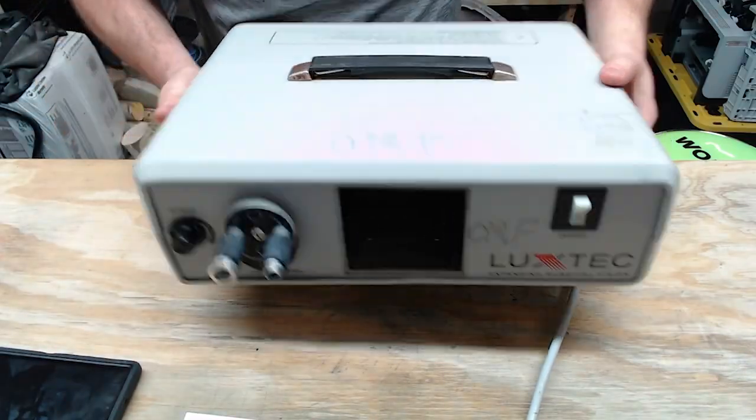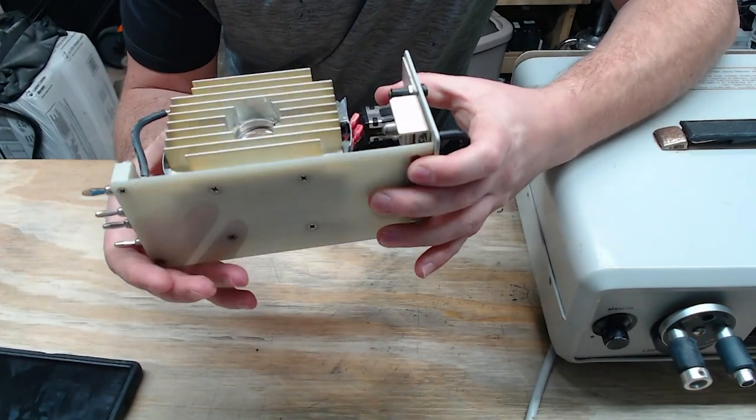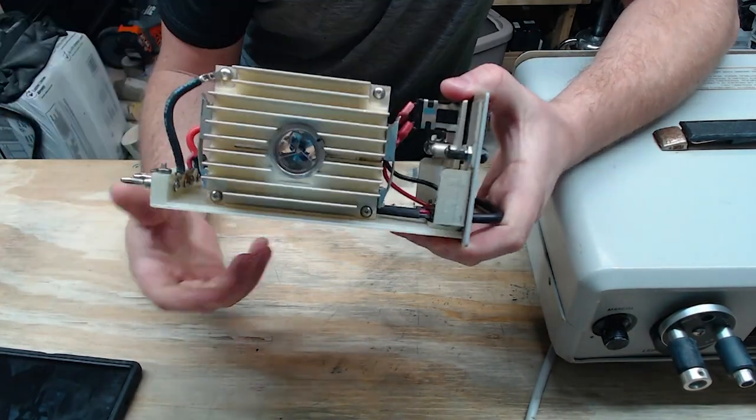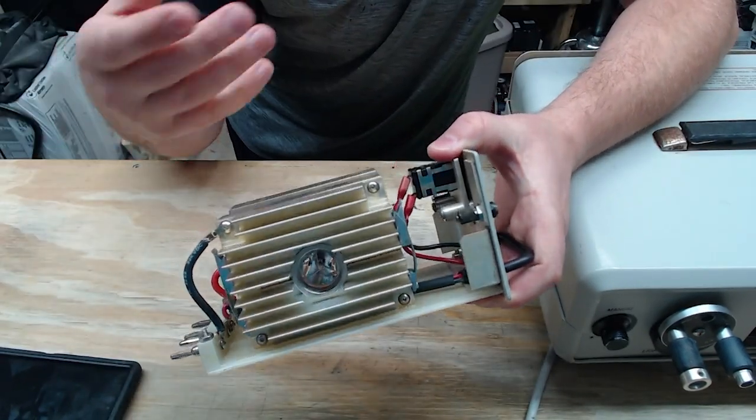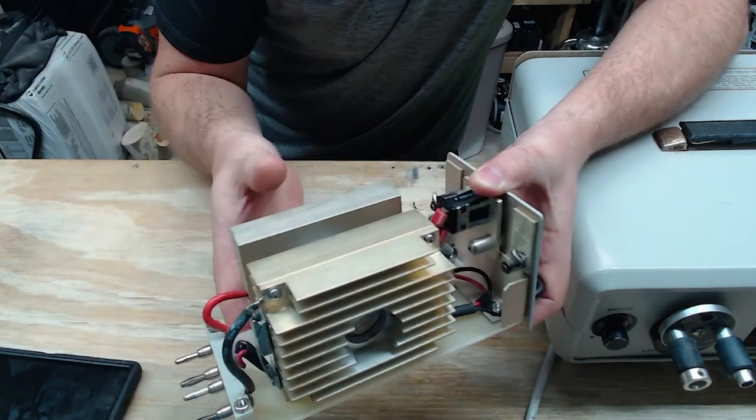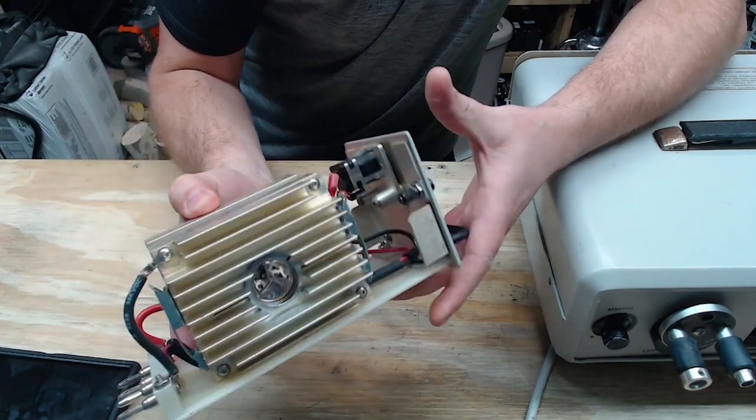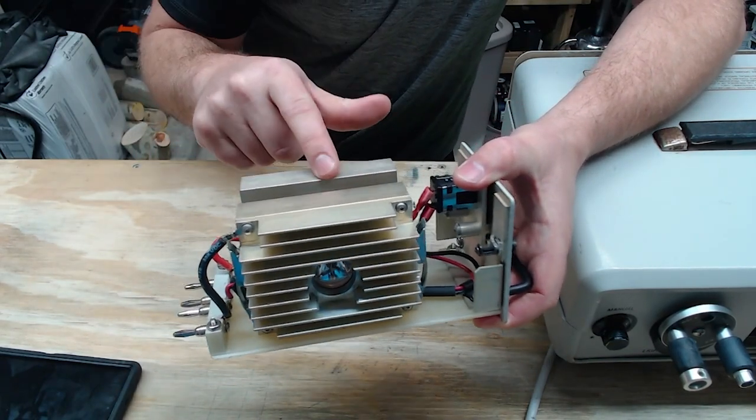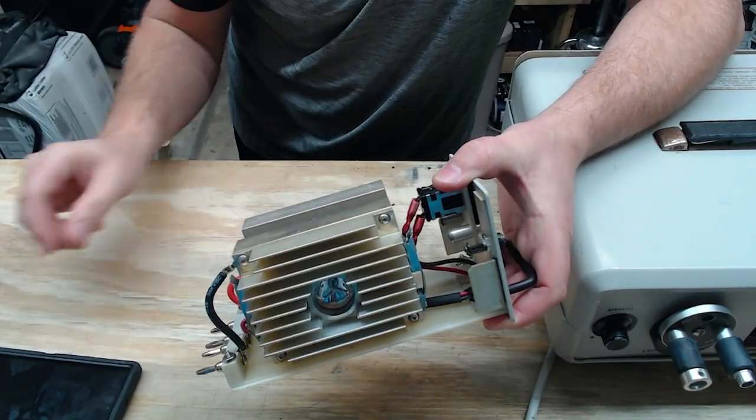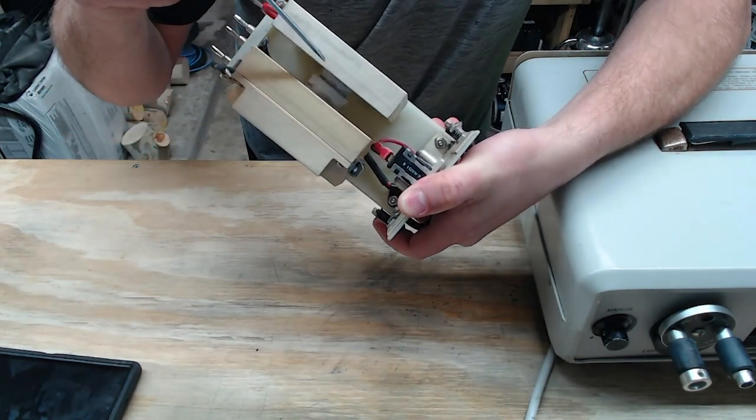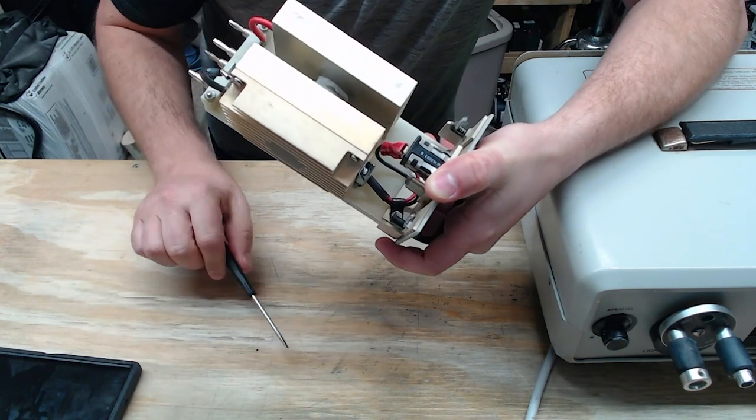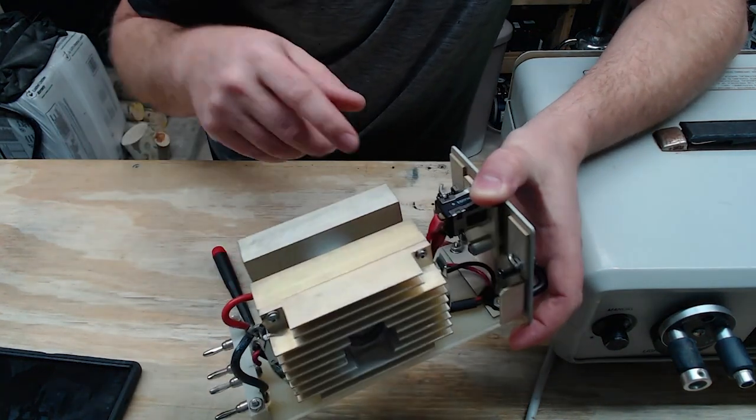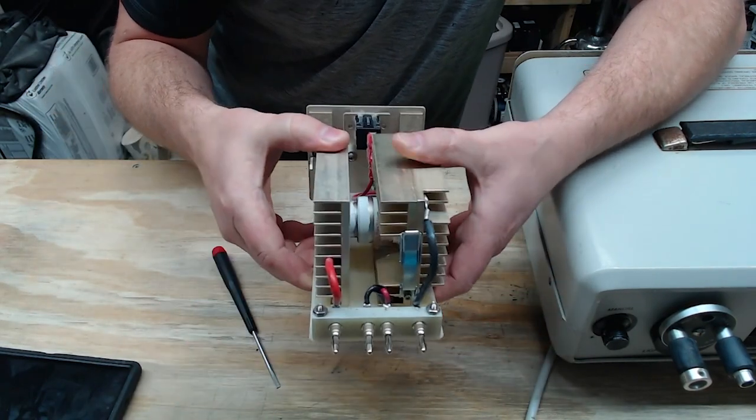Let's take a look at that light. So, this is a light module. And inside it, there is the Xenon bulb, right there. Now, it's going to be either a 300 watt or 175 watt here in the United States, but as you can see, there's no wires that go to the bulb. That's because the electricity is actually conducted to the bulb through the heat sinks. That's why we never touch these heat sinks while it's actually lit up and powered. On the bulb, you can see we have this white paste which not only acts as a thermal compound, but it's also a conductive agent to allow the bulb to better conduct electricity from the heat sink itself.